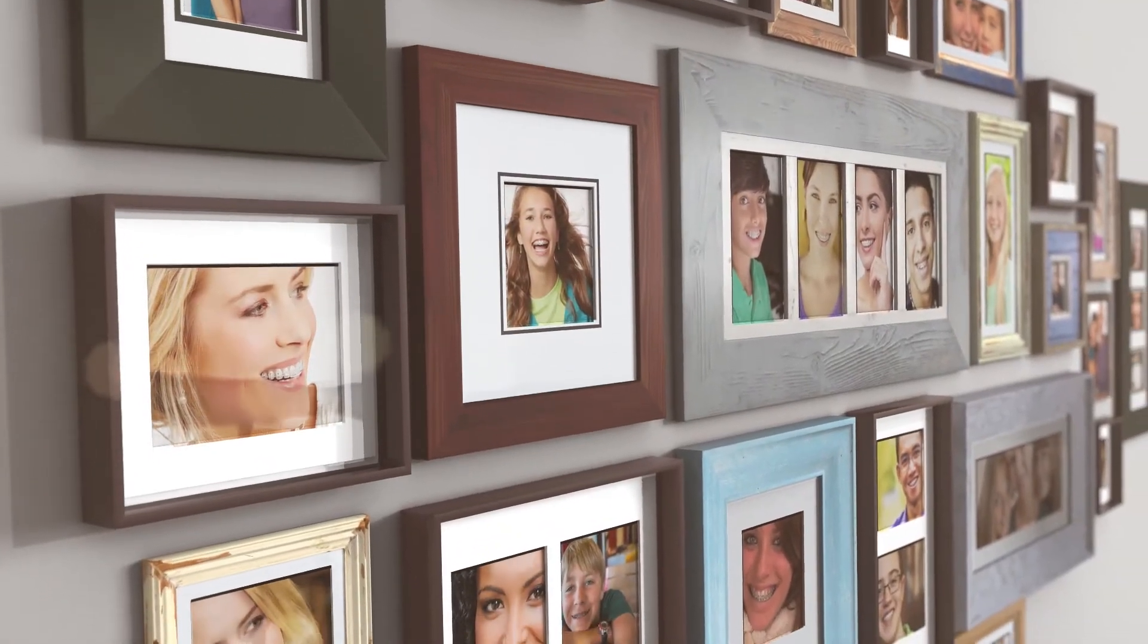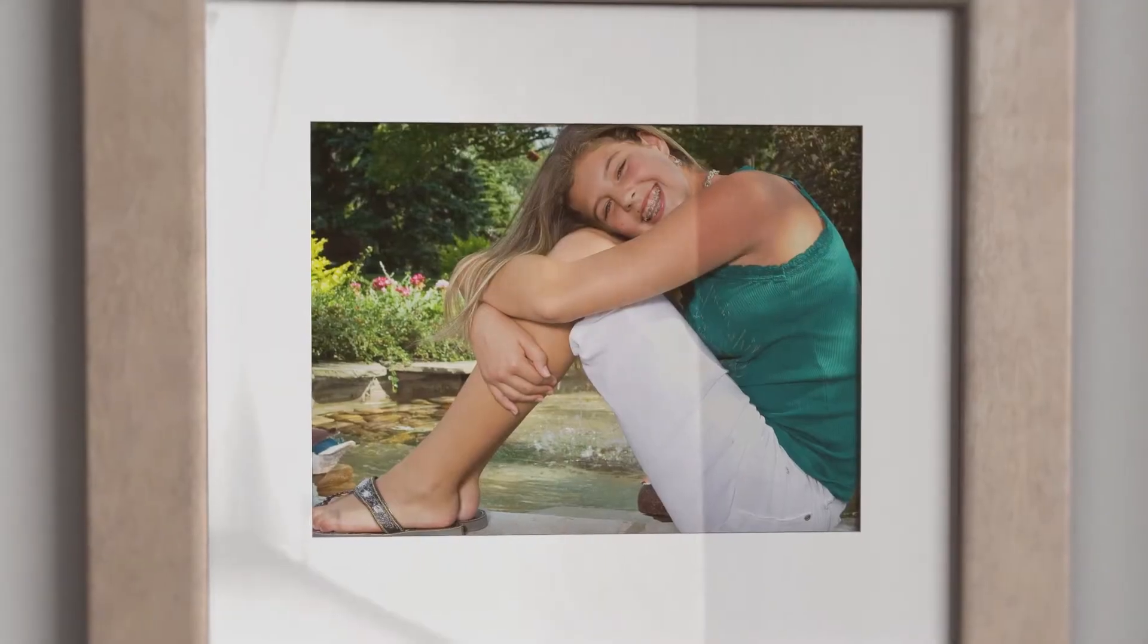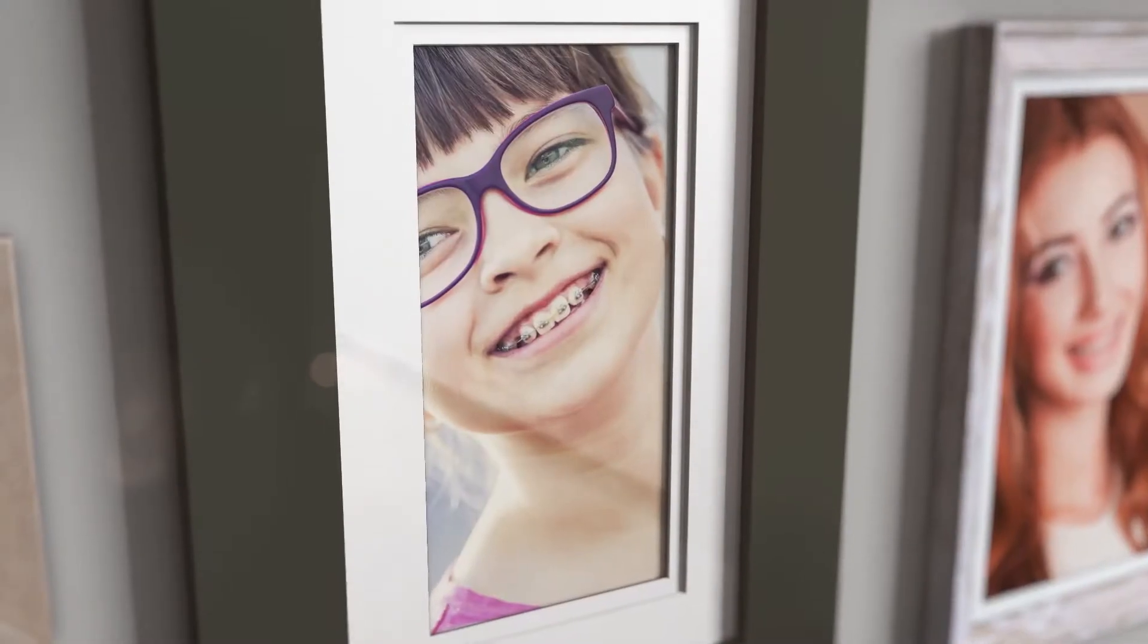Empower is designed with patients in mind, balancing comfort with results to help make wearing braces a more positive experience.